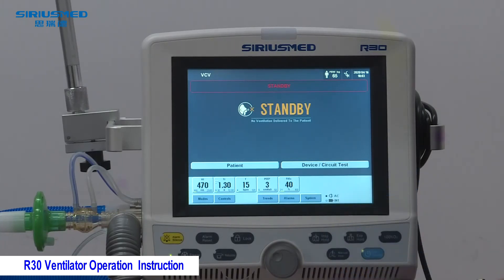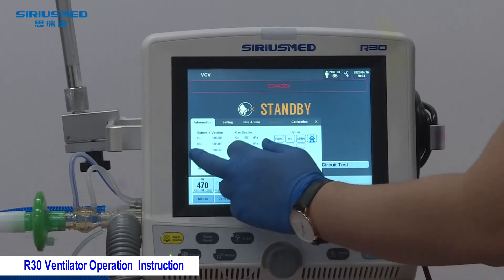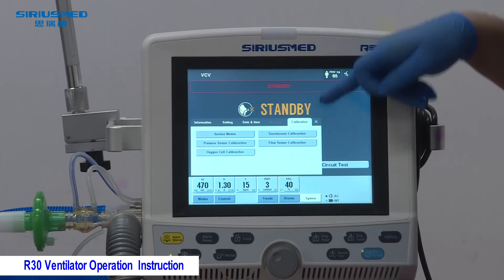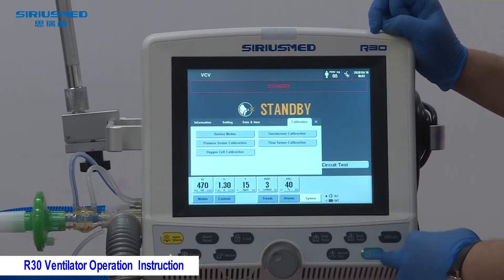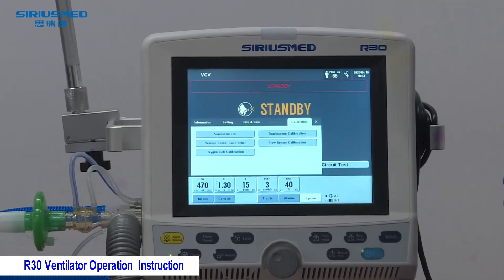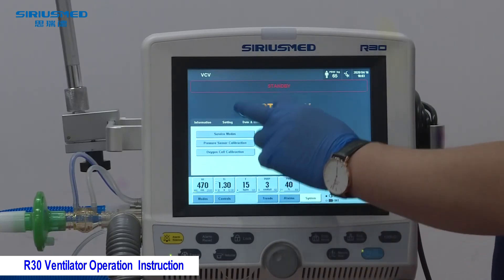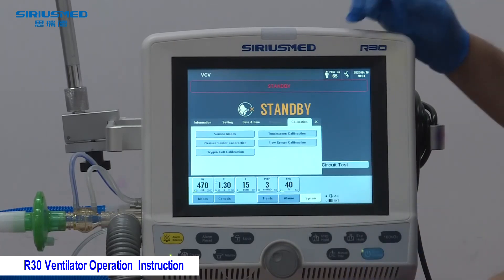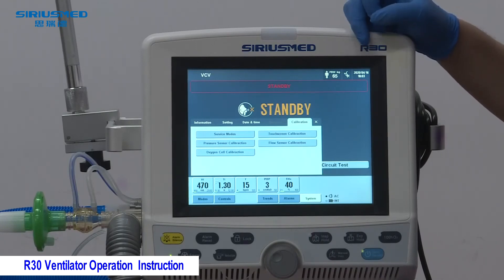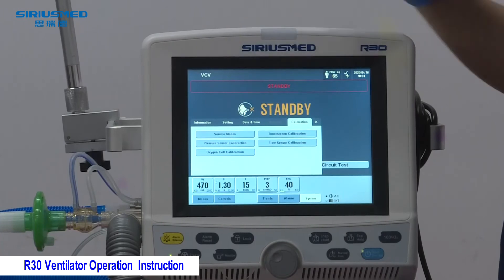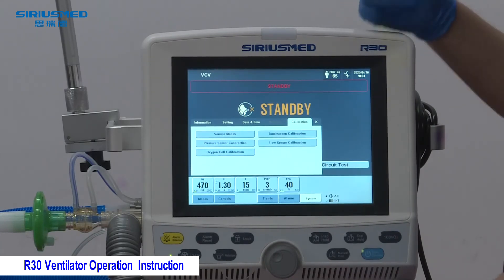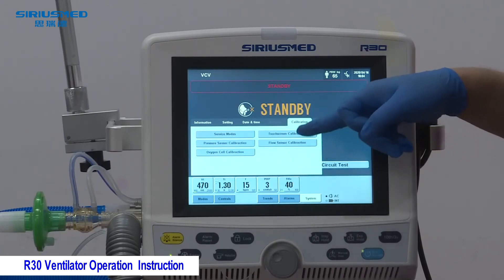Regarding calibration: you can enter the calibration menu from the System section. Important: calibration can only be performed in standby mode — you cannot enter calibration while the ventilator is running. The first option is Service Mode, which is only for engineers. For pressure sensor calibration and flow sensor calibration, these are used when the zero baseline of the pressure or flow waveform is abnormal. To perform these calibrations, first remove the tube and ensure no airflow is directed at the pressure sensor and flow sensor, then press the respective calibration button.